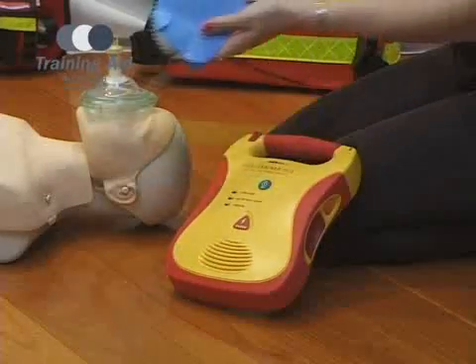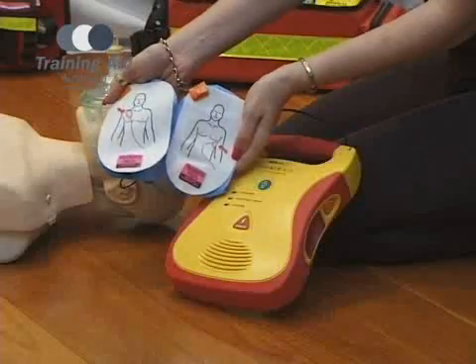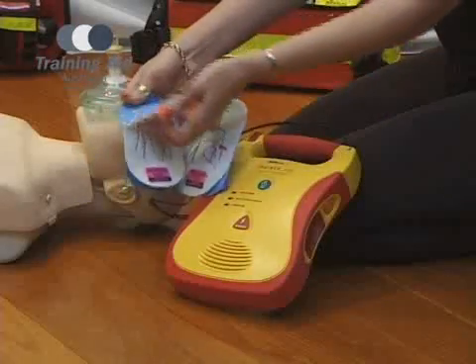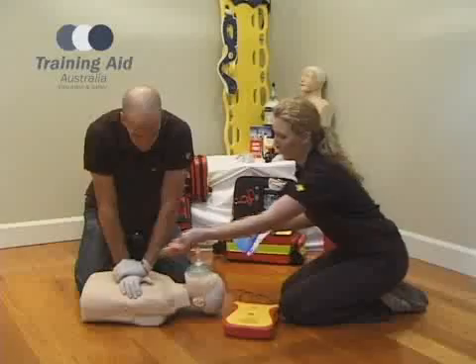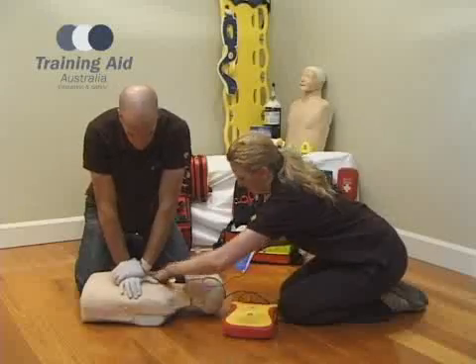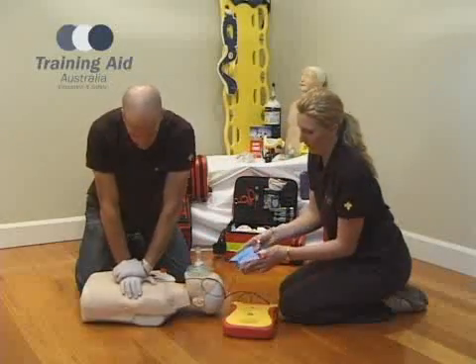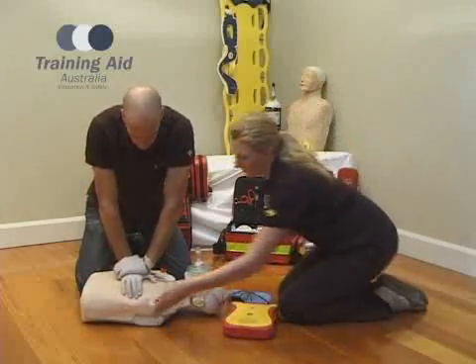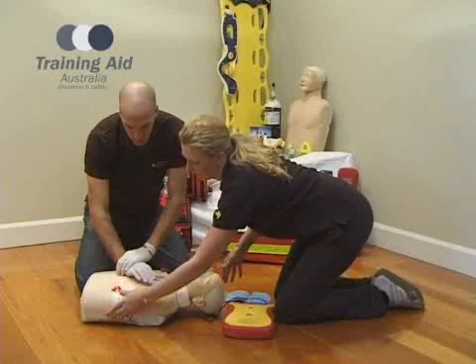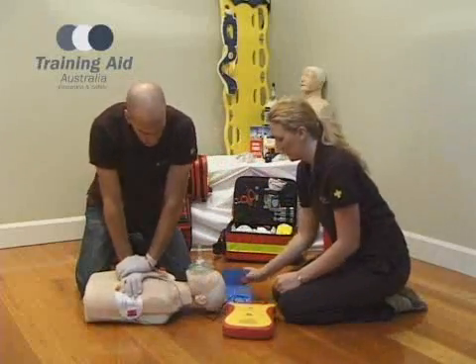If an AED is available, you should apply it to the patient's chest as soon as possible. The pads that come with the AED clearly demonstrate where to place them on the patient, and they must be placed on the bare skin with no hair between the pads and the patient.